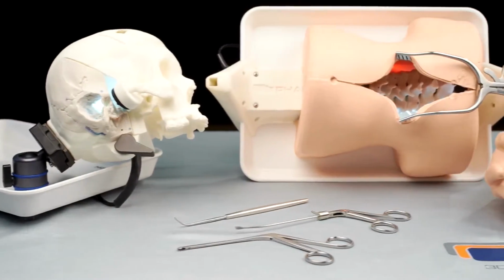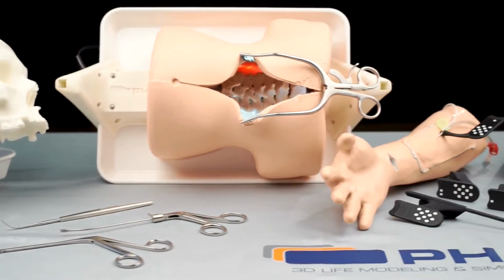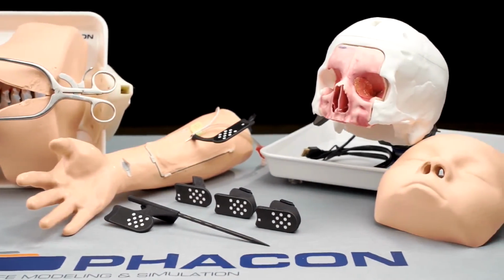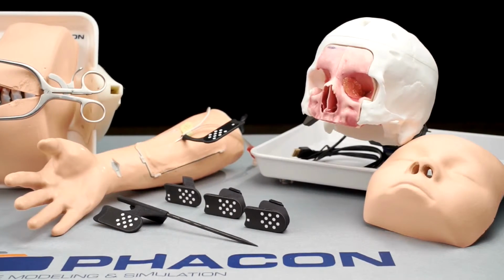All the Phacon training systems which we provide are based on the same Phacon concept: the artificial model combined with the virtual environment. Thank you. And now I wish you the best training results.